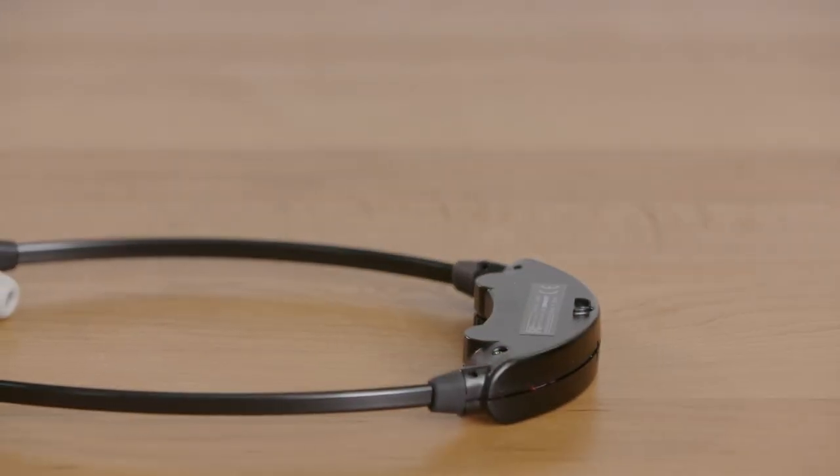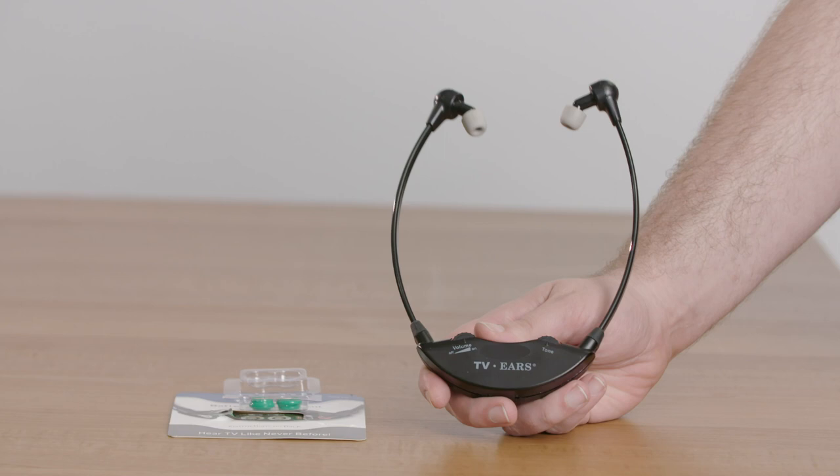Once everything's screwed back together you're pretty much set. Just put it in the charging cradle and charge it for 10 to 14 hours and then it should be ready for use.